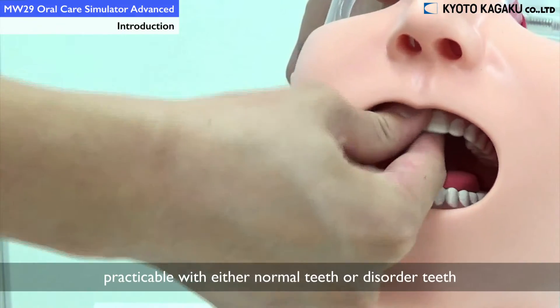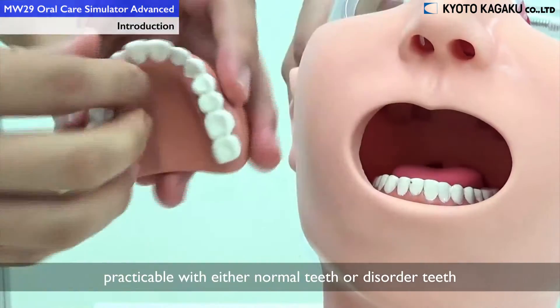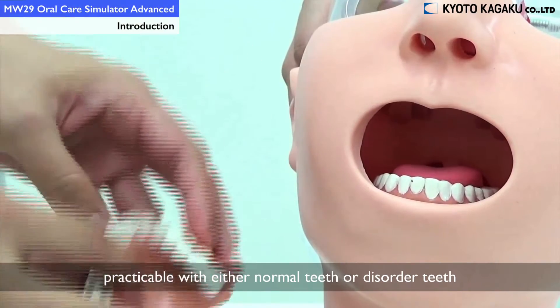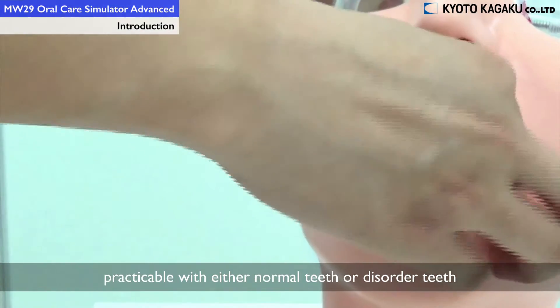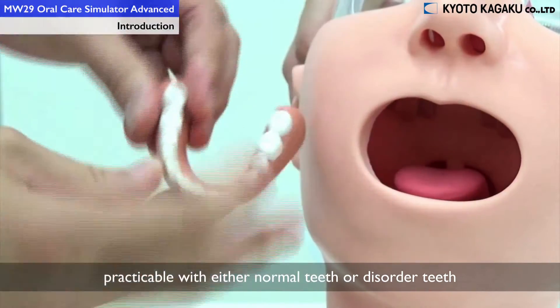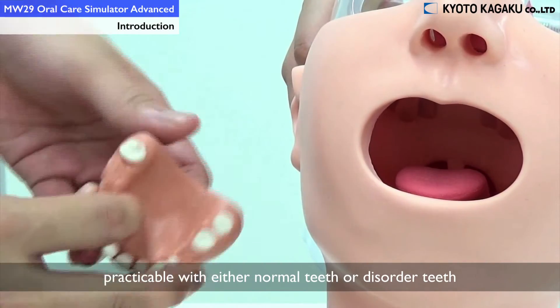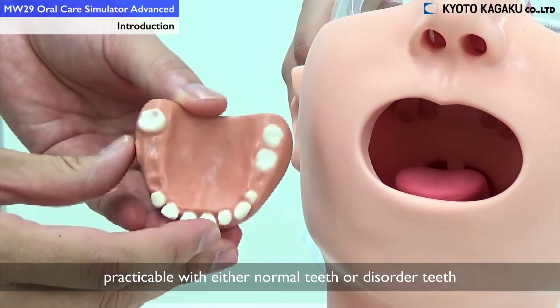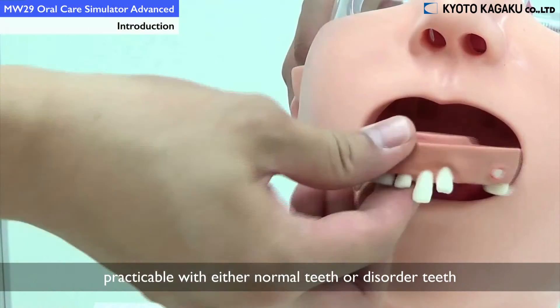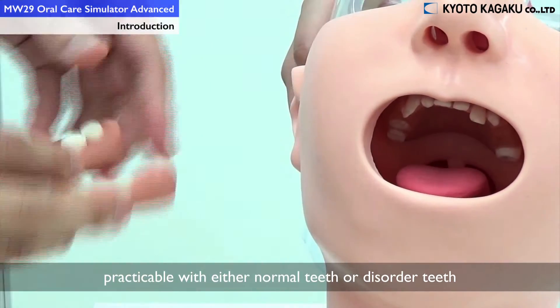There are two types of teeth available with this model. The first one is the normal type of teeth. The second one is the diseased type of teeth, which you can see here. And you could replace it just like this.